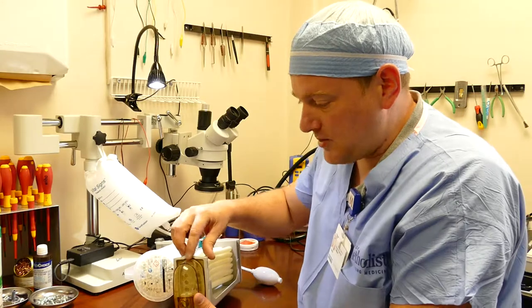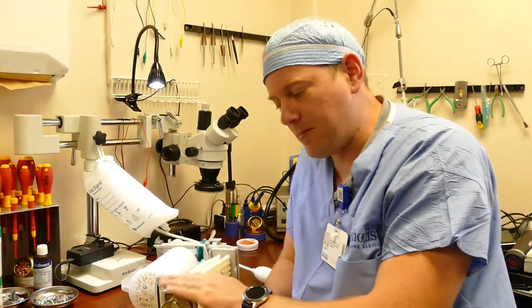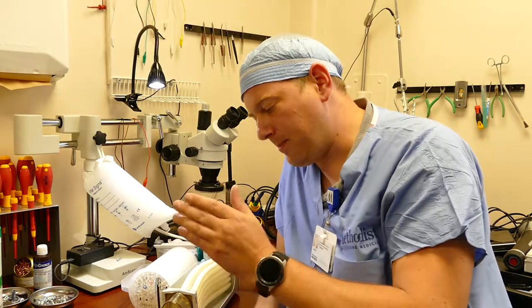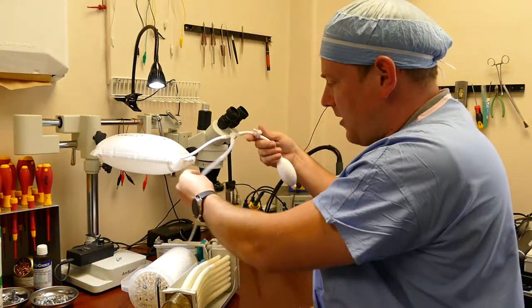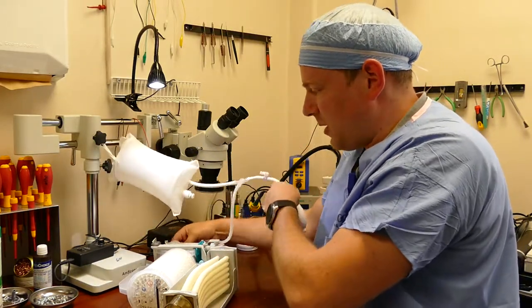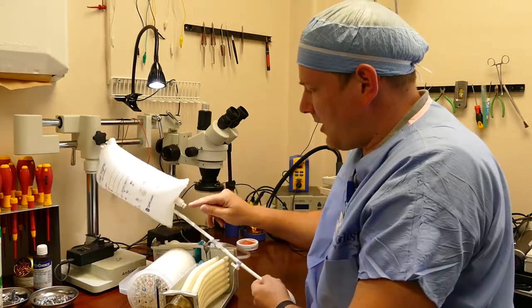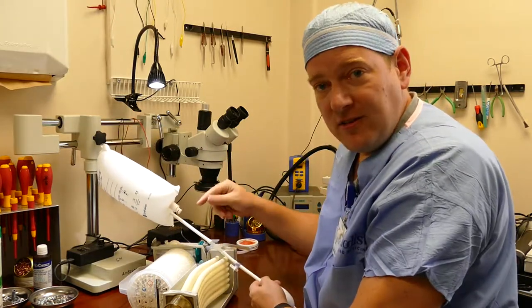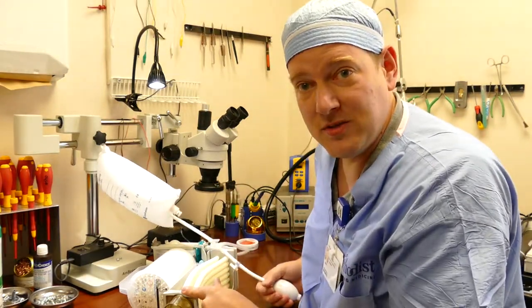It was actually blown out, and this will happen when somebody impacts the bottom of this moisture separator. Sometimes it's hard to find where that leak's coming from. But with a simple jig of using an orange rubber dingle hopper connected to one of these pressure infusers, I can quickly and very easily see how fast my leak is and I found where the leak was at.